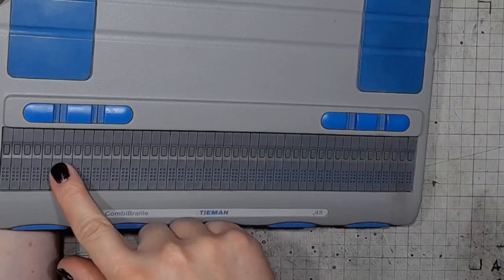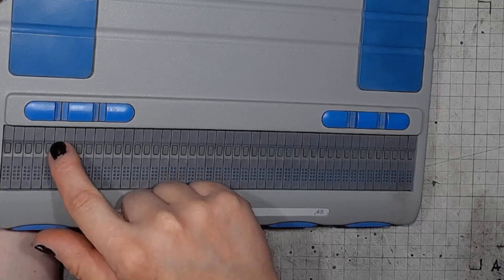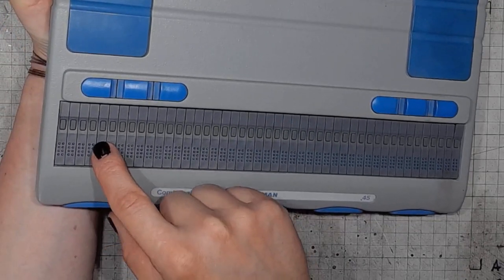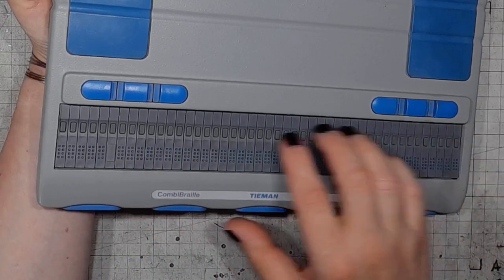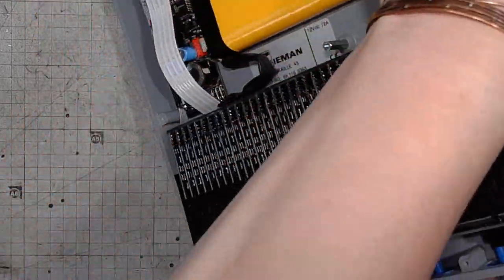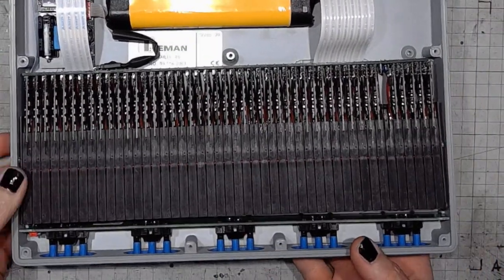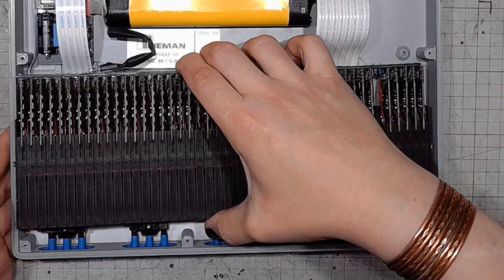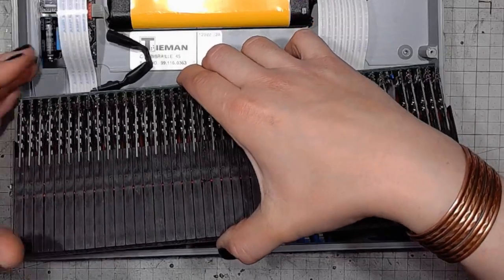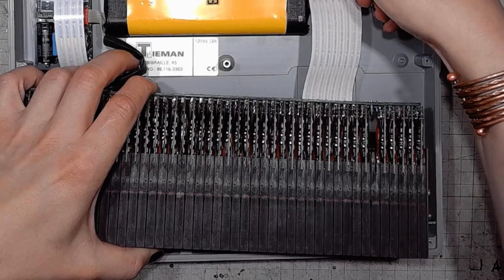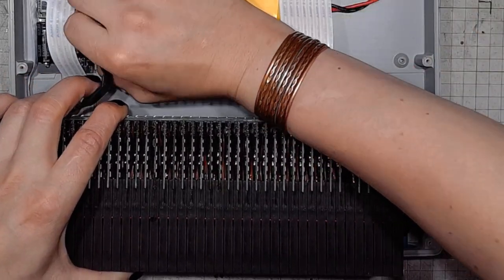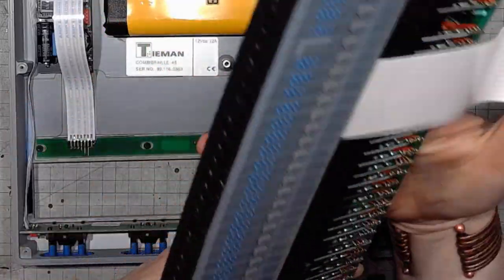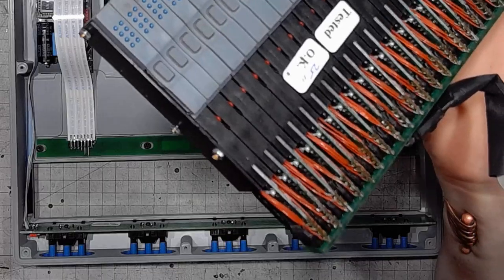So on the left we would have this control block, then a separator module, and then the proper text modules. And it discombobulates quite nicely. I would like not to damage this whole assembly if possible. I will disconnect it from the rest of the device and show you how beautifully it is built.